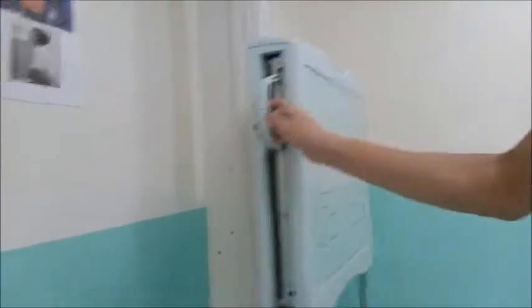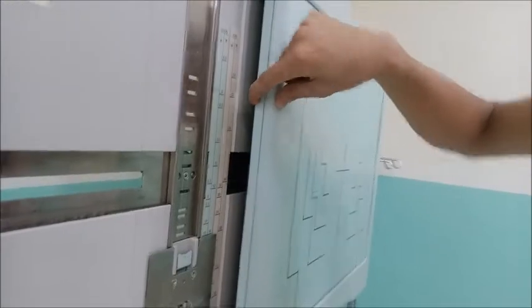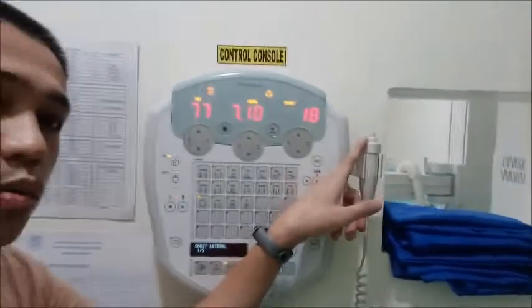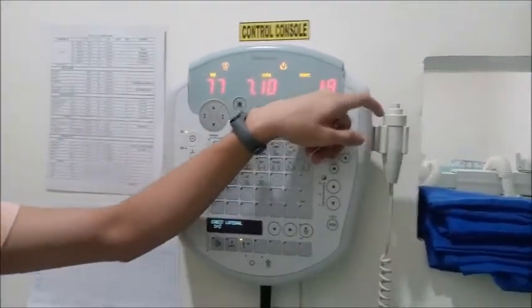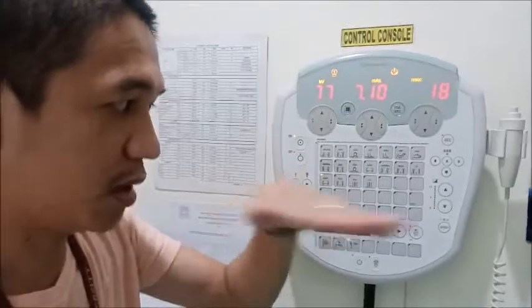Also, there is our chest stand. The grid is embedded here too. So that's why you can see it is somewhat thick, because there is a grid there. Okay. So they are moving. Now they are termed the moving grid because once we press the exposure button, once we do the full pressing of the buttons here, then the grid will move. It will move. There is RMDC, we don't have the stationary grid.